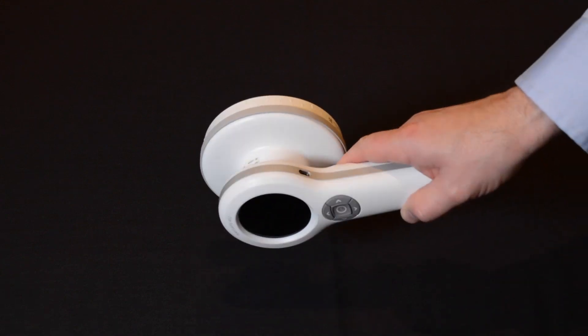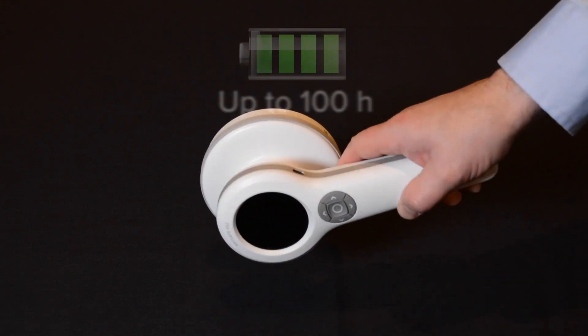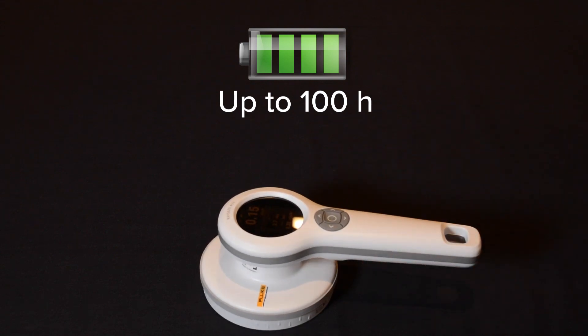Charging is done with a micro USB port. You can use any micro USB charger, or you can use the one included with the product, which will charge it a little bit faster.